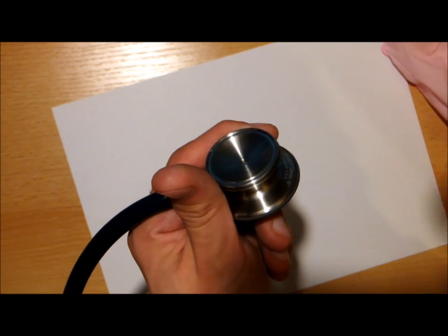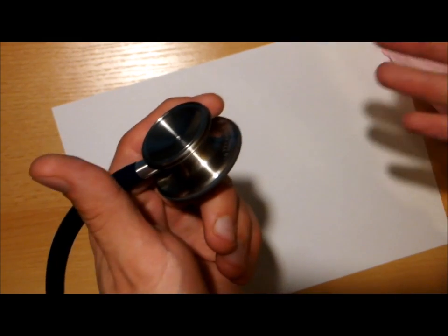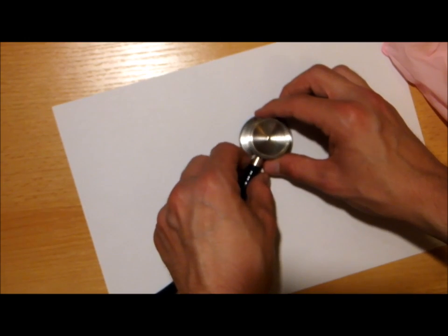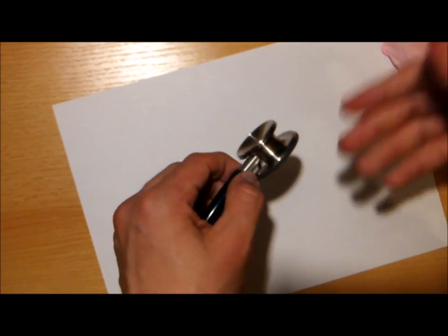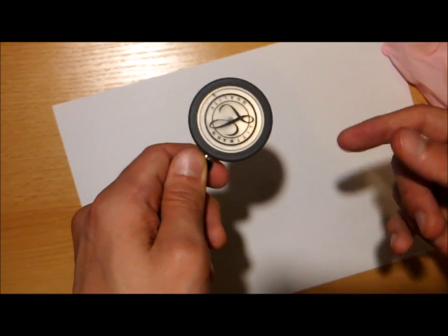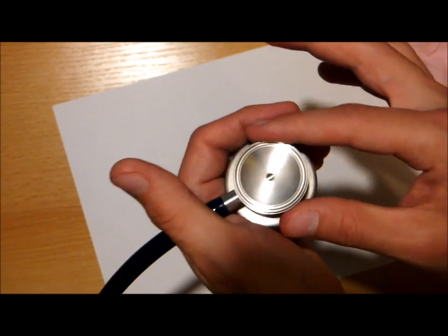So the key and the trick is to hold it in the air, not try to put the chest piece on the table or something, because I would be afraid to damage the diaphragm, the bottom diaphragm. So just hold it firmly in the air.